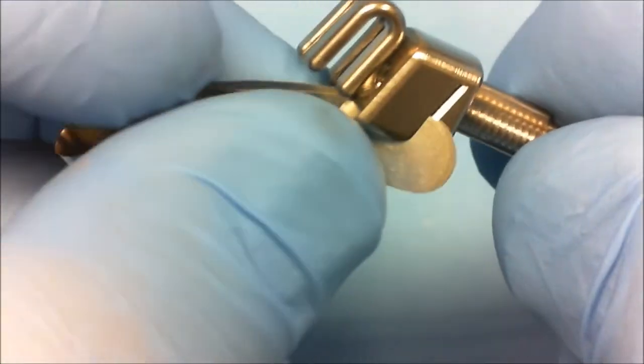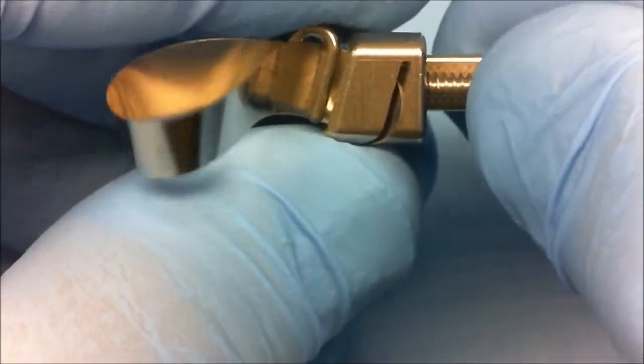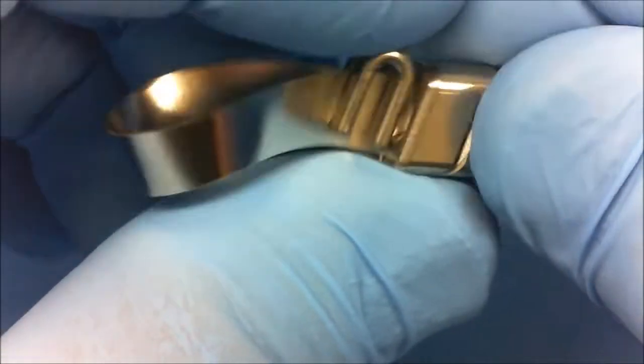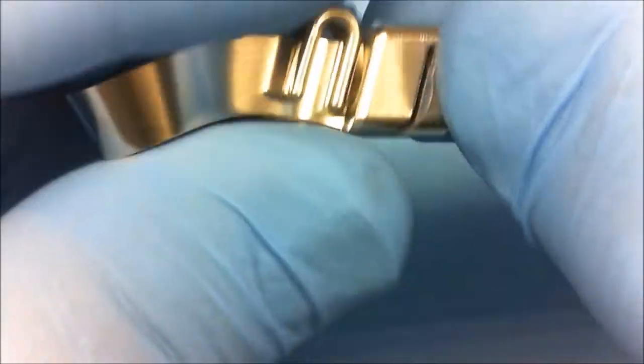Using a standard greater curve band, do not move the band to the left or right as we are accustomed. Instead, set the band straight out from the retainer end. To maximize band loop, place the tails just inside the vise as seen.